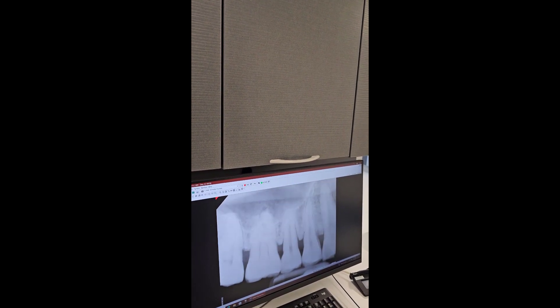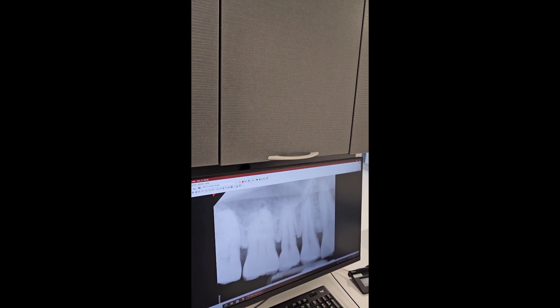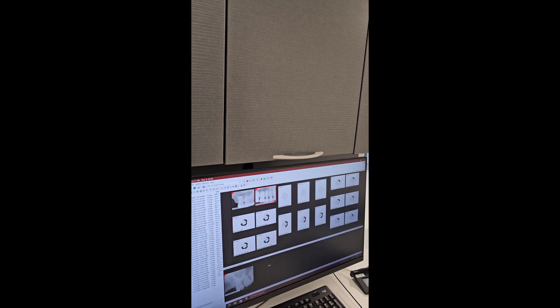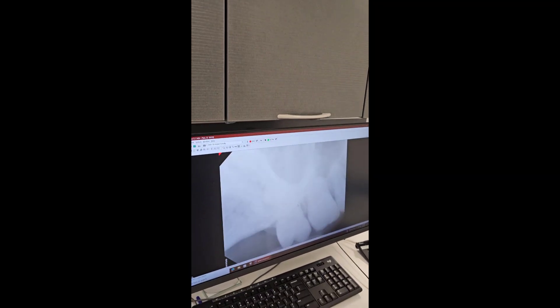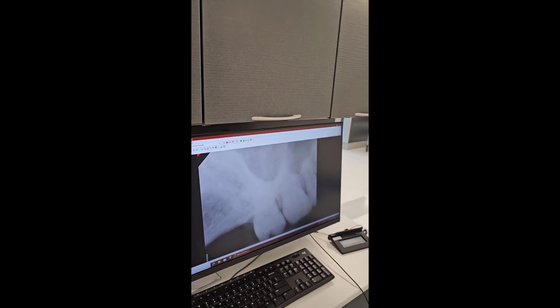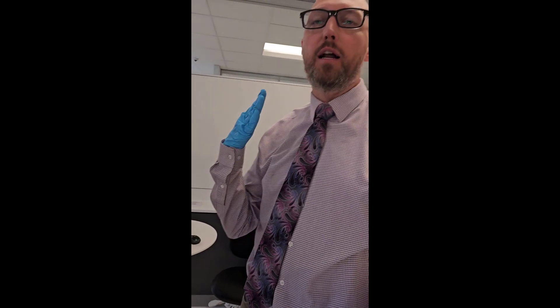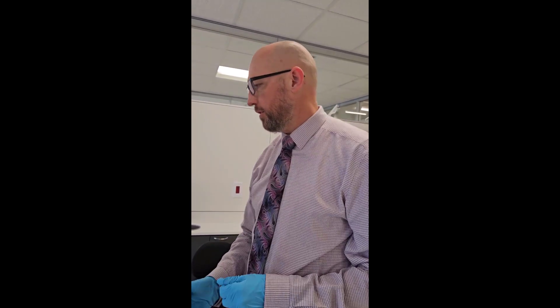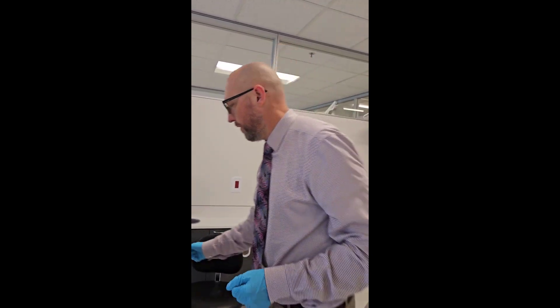That looks really nice. This is what we'd like to see, as opposed to a lot of what we're seeing. Hopefully that helps. Same thing with the mandible — I see a lot of coming really steeply from below. You can flatten that out and still capture the apices in 99% of patients. Let me know if you have any questions, but hopefully that's helpful.